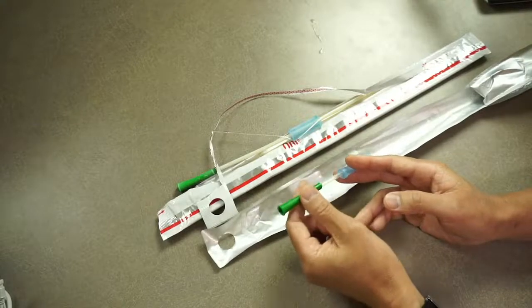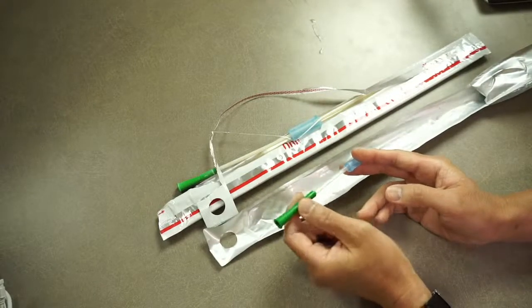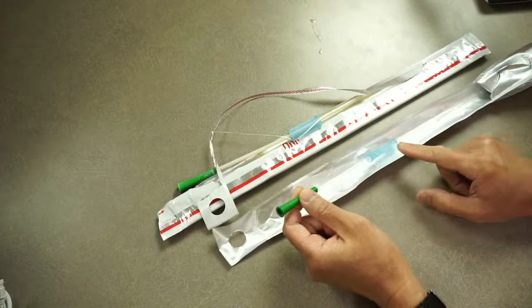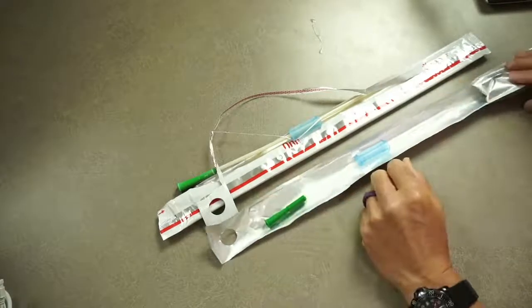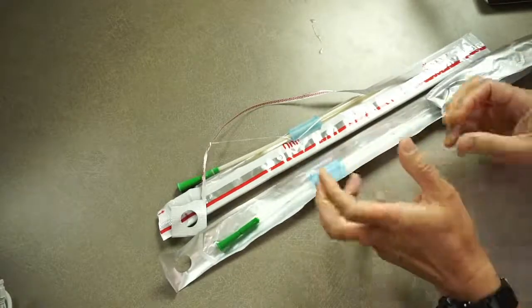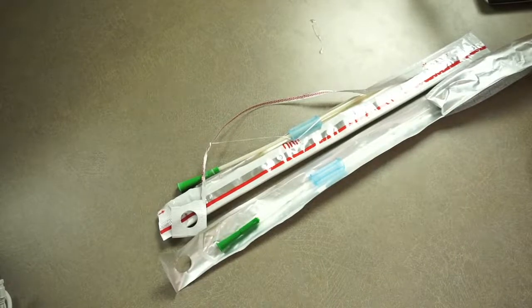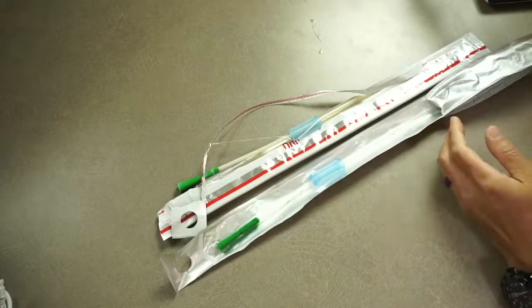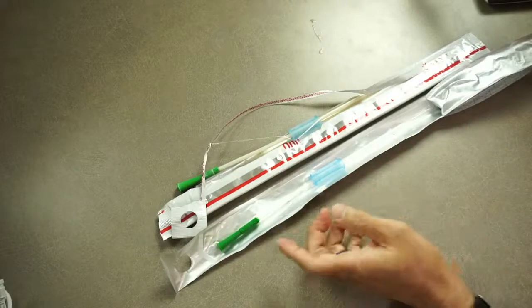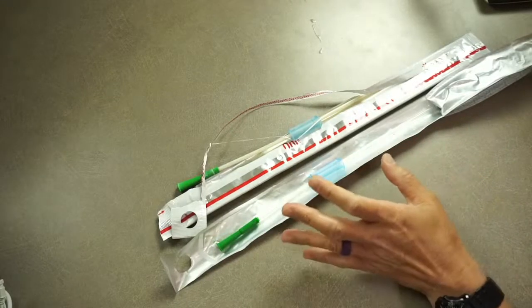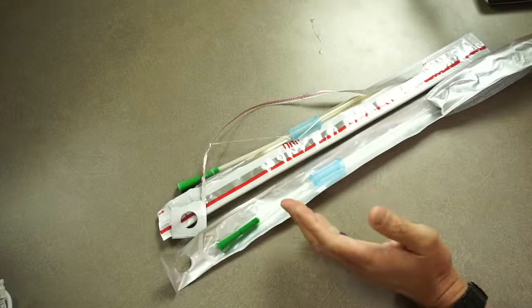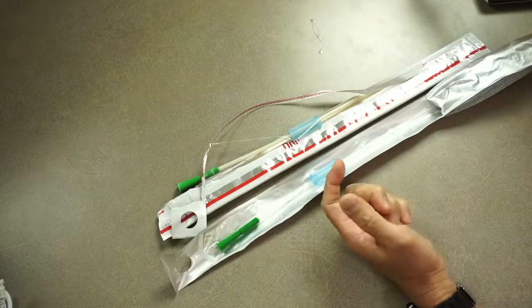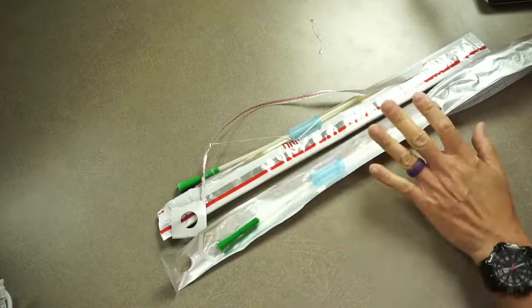Not only that, although you can't feel it, they made this catheter even slicker, meaning more lubricious. I don't know, they improved the product - the catheter itself, the composition. They made it slicker, more hydrophilic if you will, for those technically inclined. These come in sizes from 8 to 16 French. There's no coude configuration - I hope they make one with an elbow at the tip to accommodate men with enlarged prostate.